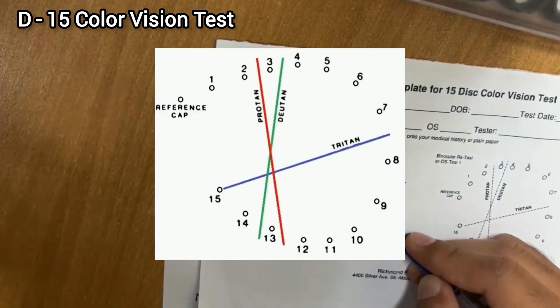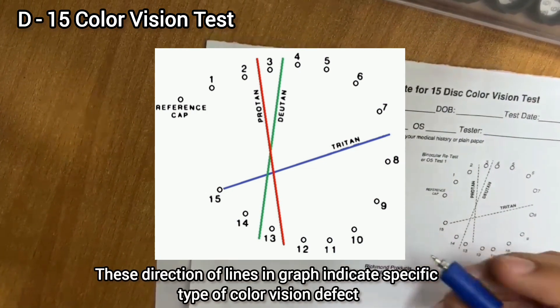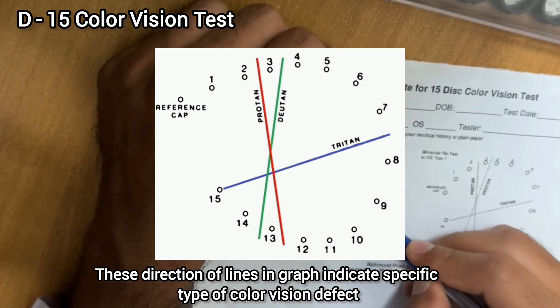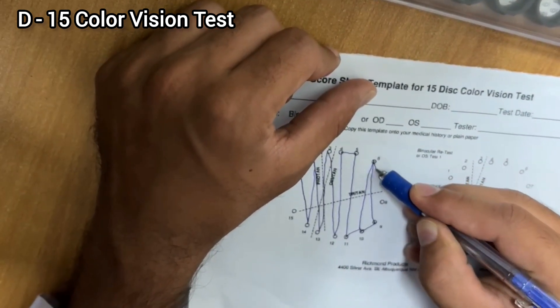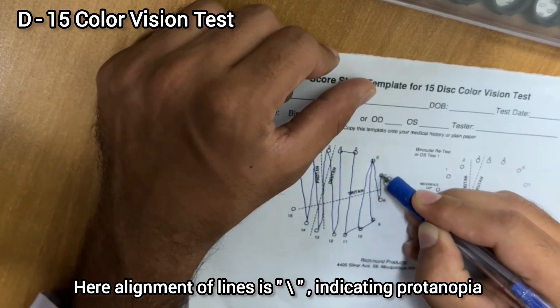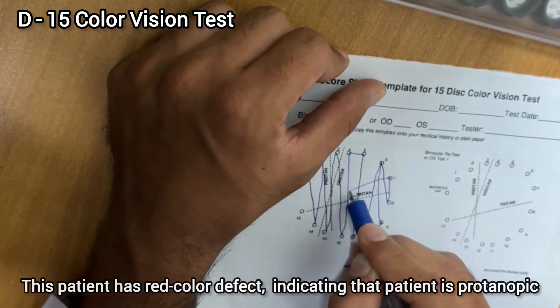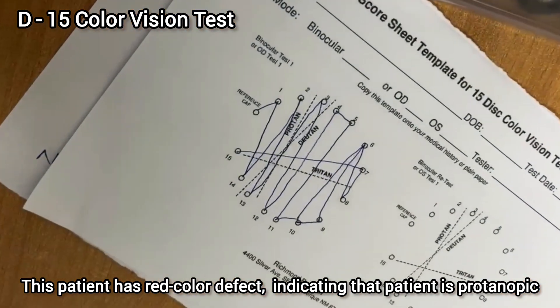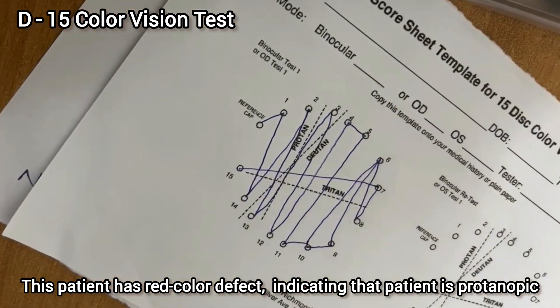By learning these graph patterns, you can evaluate which type of color vision defect the patient has. In this specific case, the pattern indicates that the patient is having a red defect — the patient is actually a protanope, meaning they have red color vision deficiency.